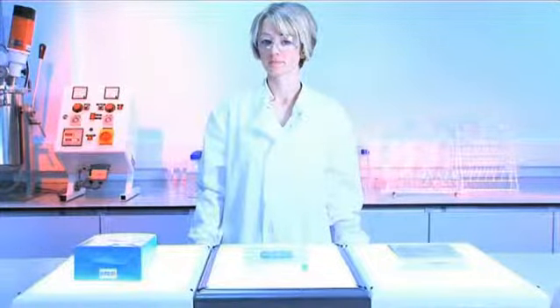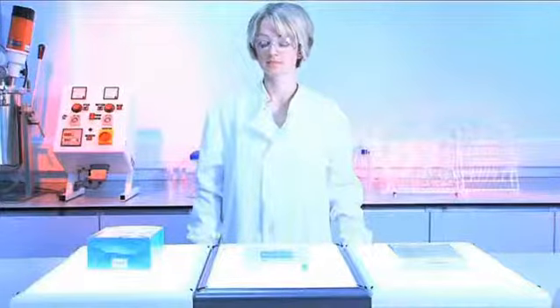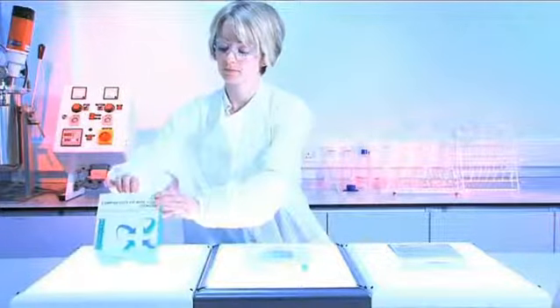In this experiment, we demonstrate how hydrofibre technology locks in fluid to limit lateral wicking. Lateral wicking refers to the spread of fluid sideways within a dressing.